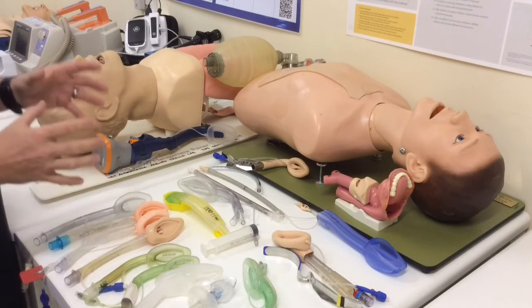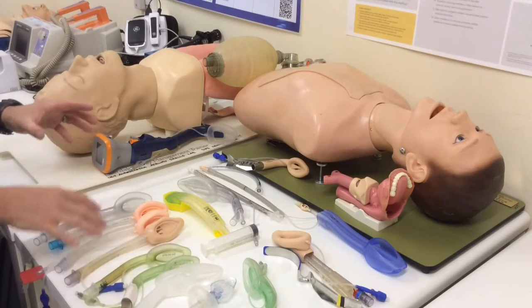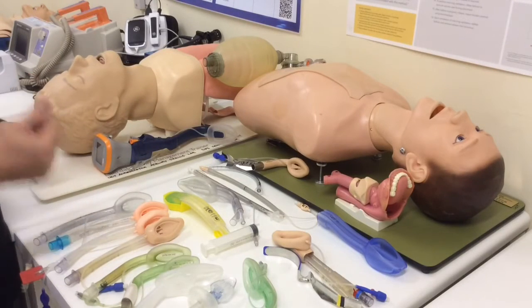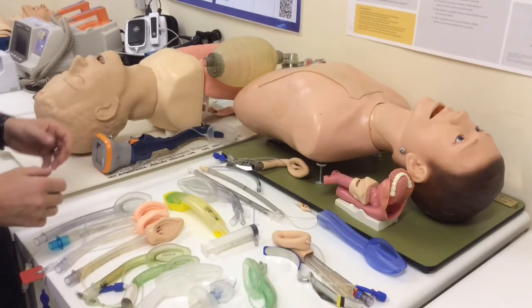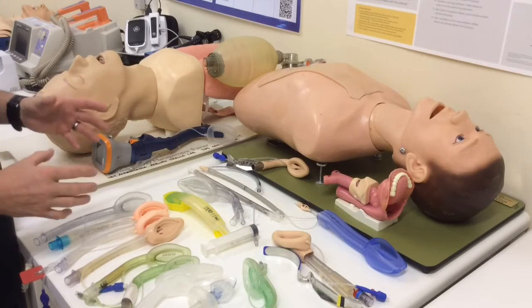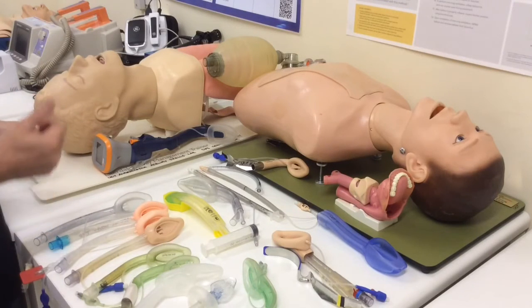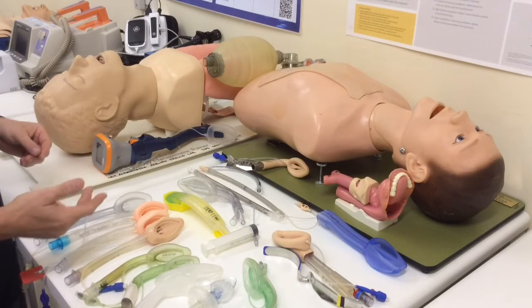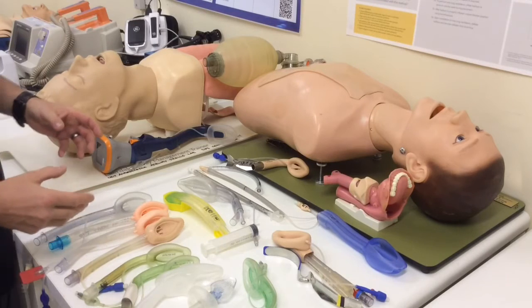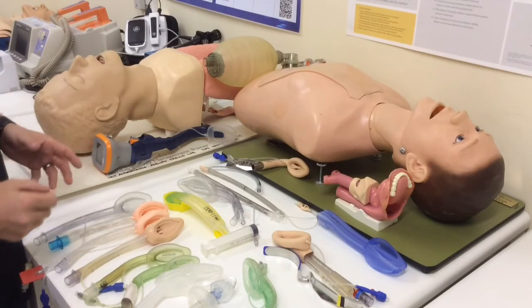Patients where there is an obstruction in the airway which is going to prevent placement of the device, recognizing that most of these devices need fairly normal anatomy in order to sit and seal well. So if there's an obstruction or a disruption of the anatomy or distortion of the anatomy, that's not going to seat well, it's not going to seal well, and it's not going to be able to ventilate the patient. And so that's the R for restricted mouth opening, O for obstruction, D for distortion, and the S is the patient with stiff lungs.